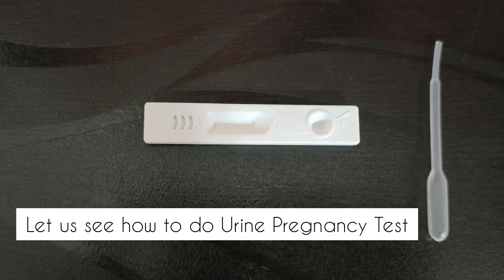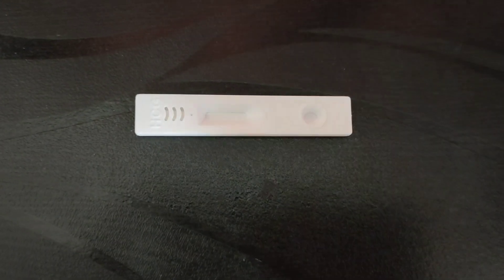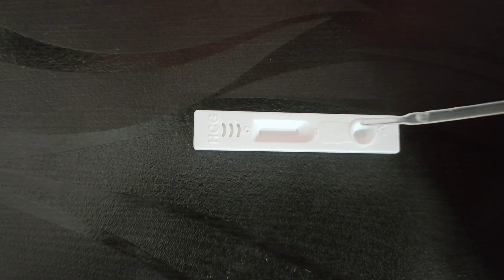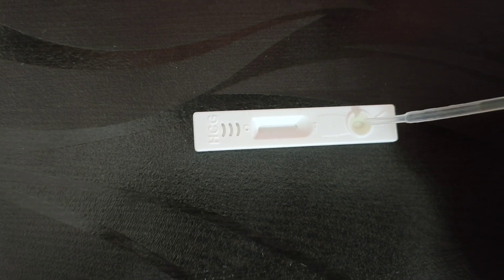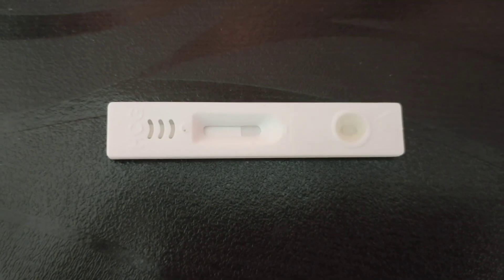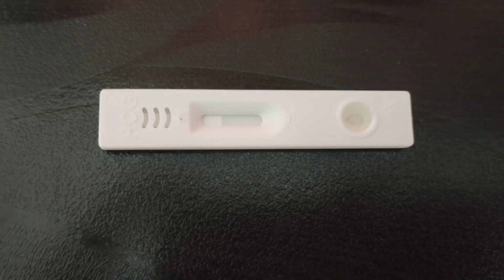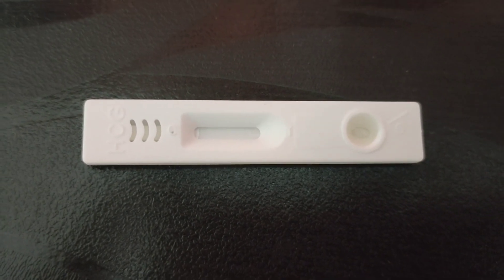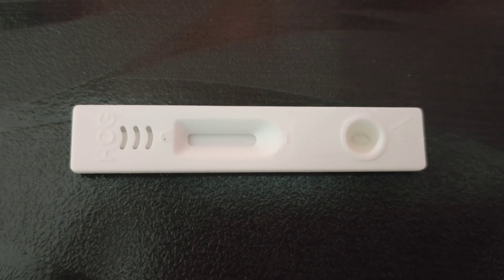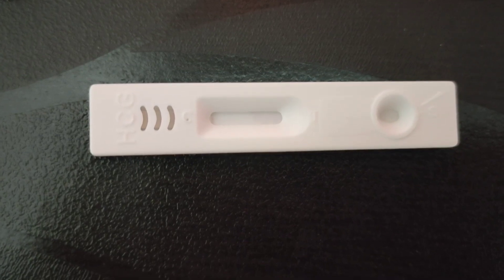So now I am going to perform the urine pregnancy test to show you the results of a negative pregnancy test kit. I have taken the urine sample. As you could see, the test is now progressing. We have to wait for a couple of minutes before we actually read the results.